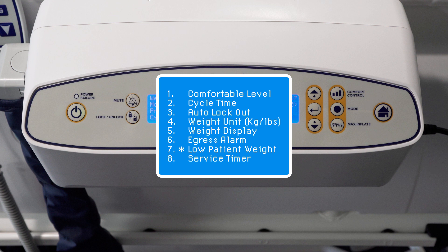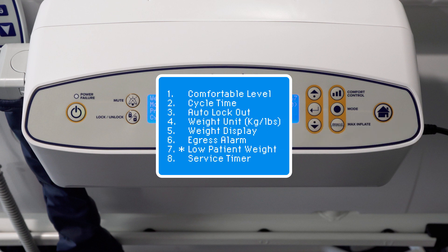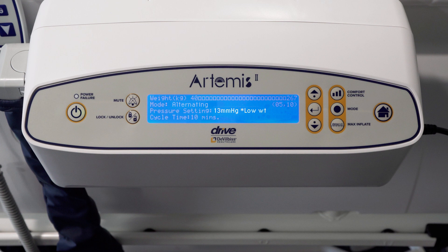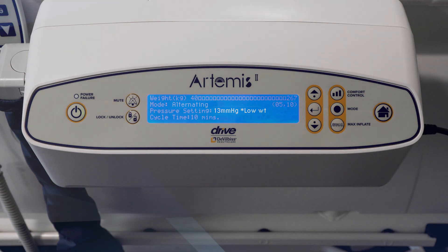A low weight pressure setting can be used for patients who are 40 kilograms and under. The text 'low weight patient' will appear on the home screen digital display and the pressure in the air cells will be significantly reduced. If the pump is turned off, the low weight setting will need to be reset.